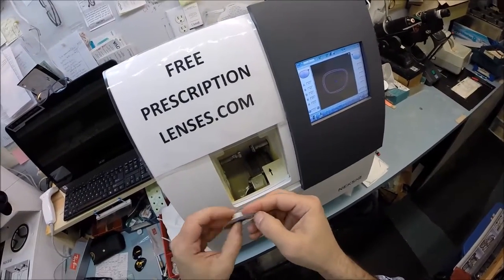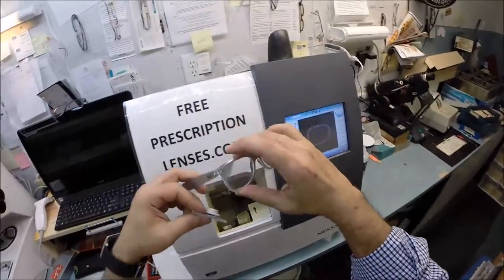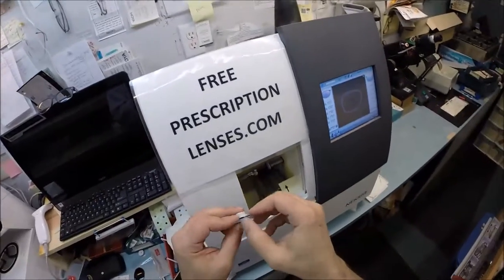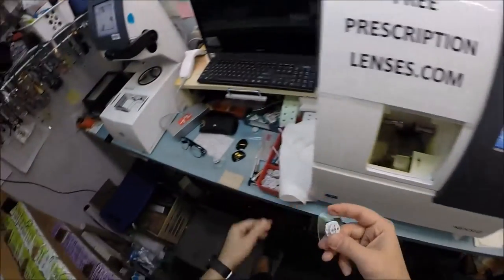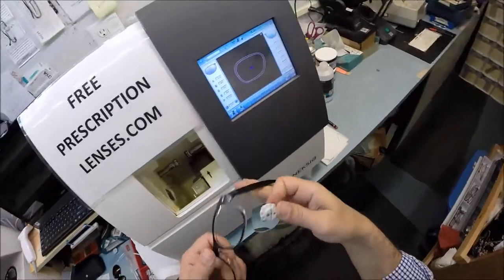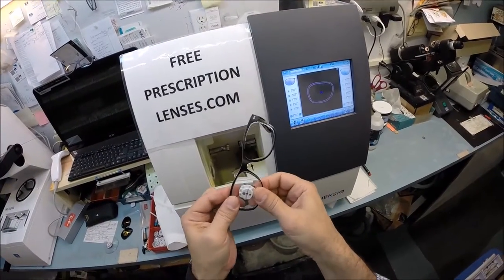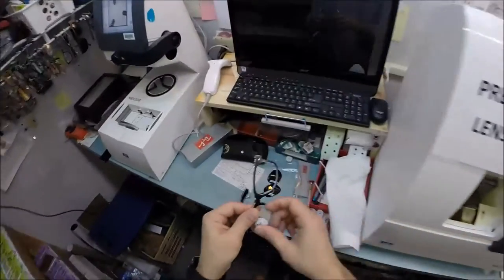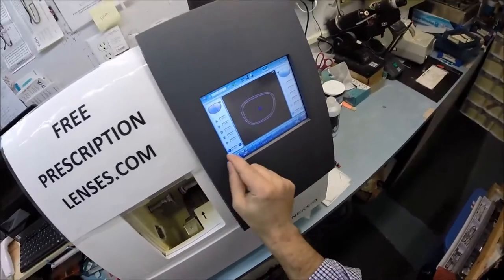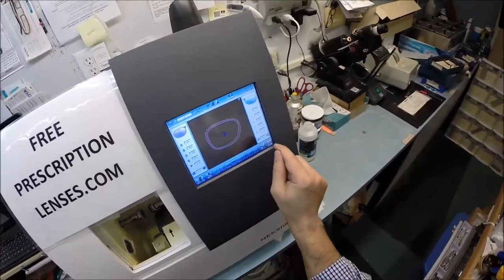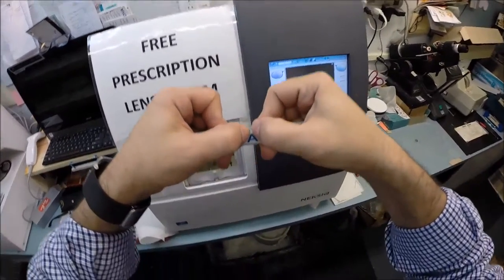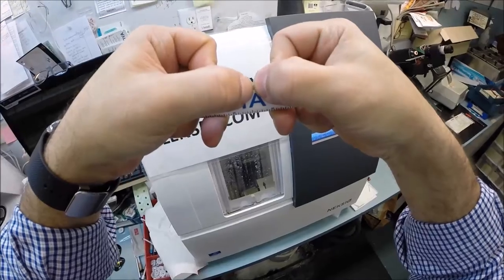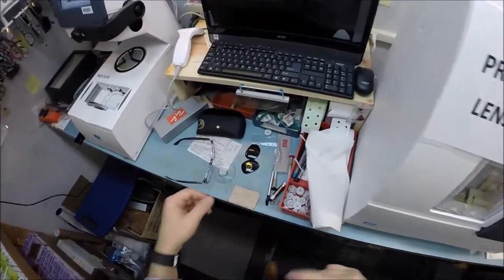We're gonna see if your lens fits first time around, which I doubt. That golden rule while cutting a piece of wood or lenses - you can always cut off more, you can never add it back on. So I start a little large and work my way down. The 55 has a deeper bevel than the 52 that I wear. I'm gonna tuck the lens in at the outside surface, push down at the nose. It doesn't want to go. So I'm gonna take it down another quarter of a millimeter. A millimeter is the distance between my thumbnails.